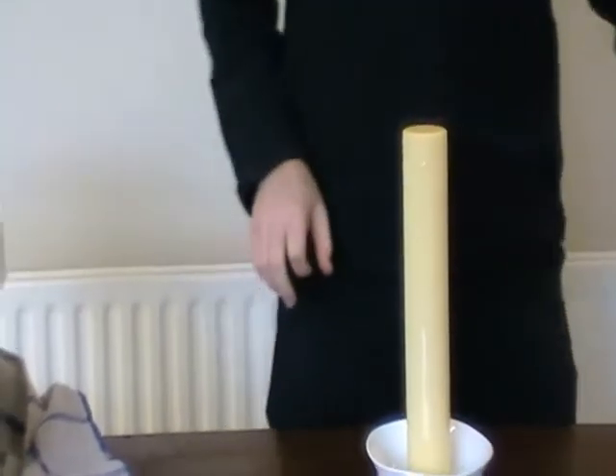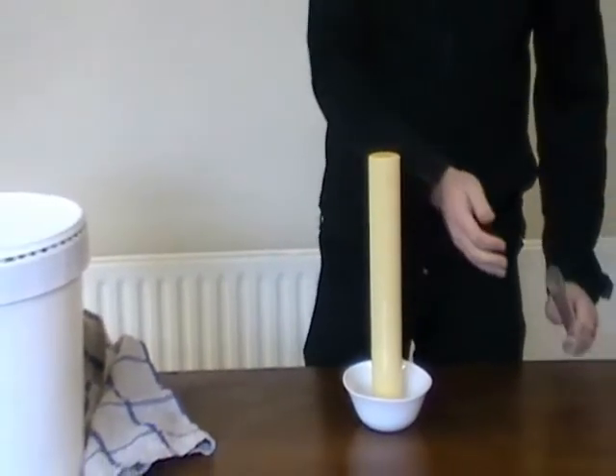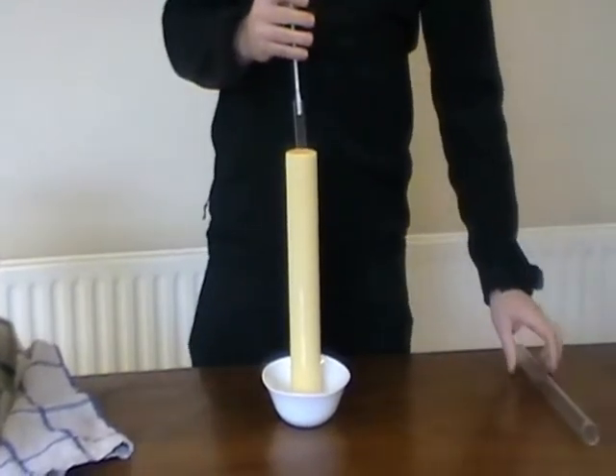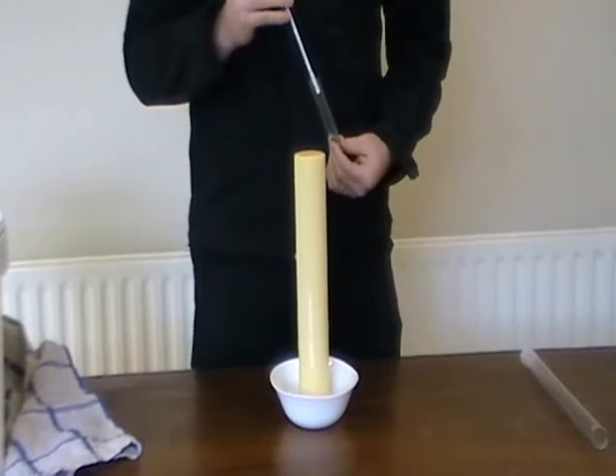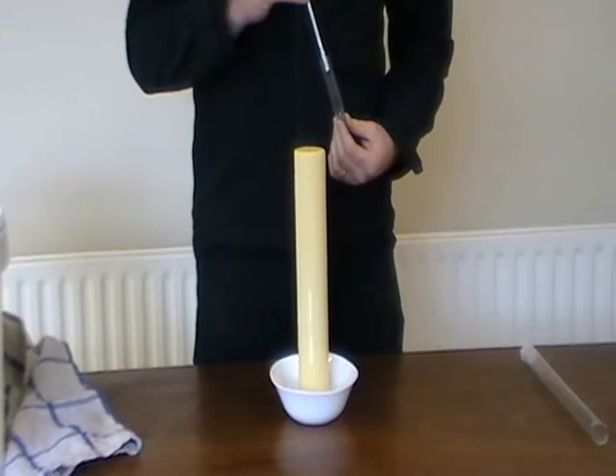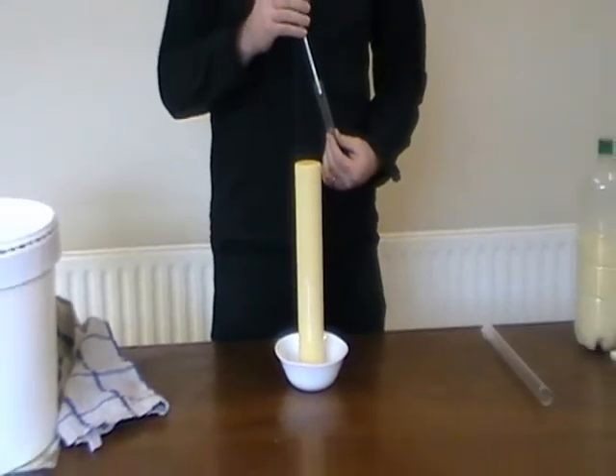The action of testing is very simple. The colostrometer is a hydrometer that will measure the specific gravity or the level of immunoglobulins in the colostrum. The higher the level of immunoglobulins, the thicker the colostrum, and the higher the hydrometer will float.